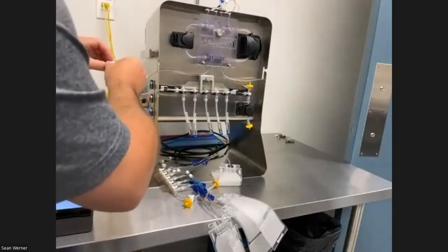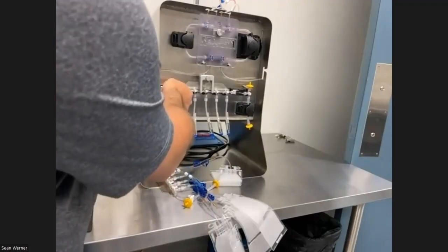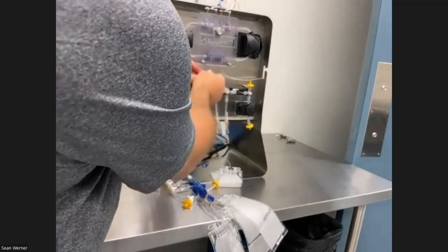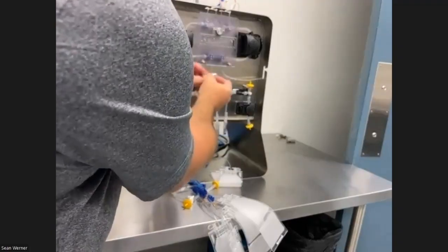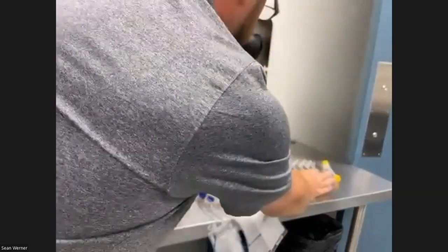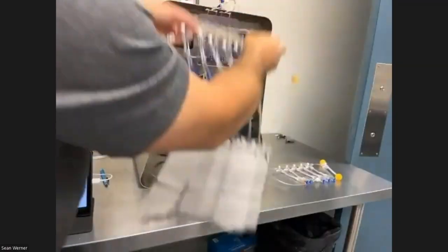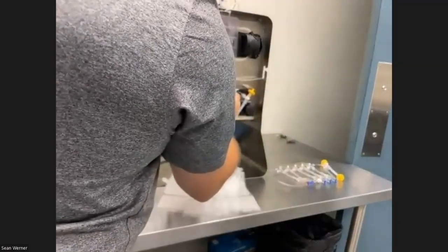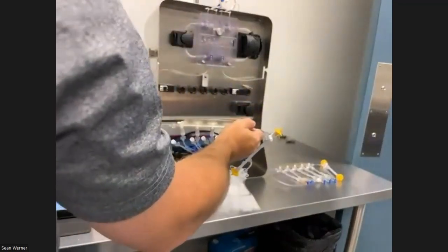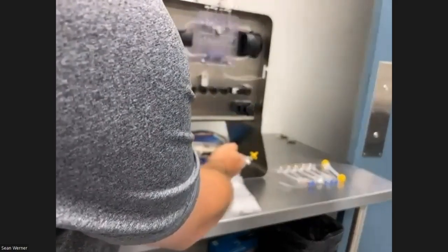What was that hinge valve? That hinge valve. Pull that off. So then this is where you would take this off, and that goes downstream. Place on the next unit. In this case, these are 15 ml bags. I jumped ahead in the protocol. It's moving the valve set to the next position to put the next set on.